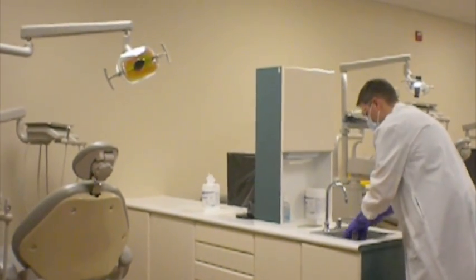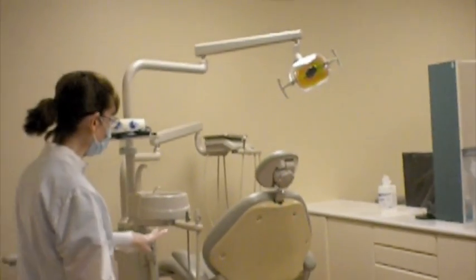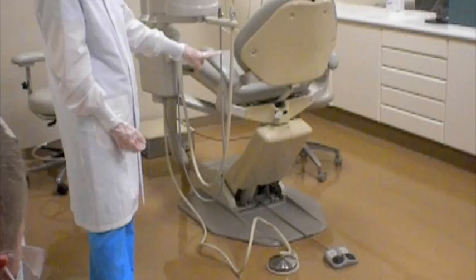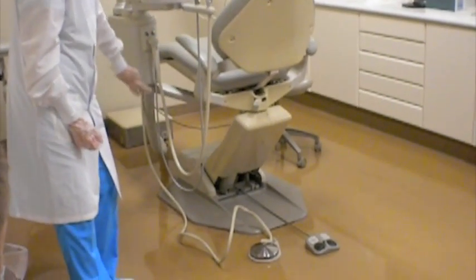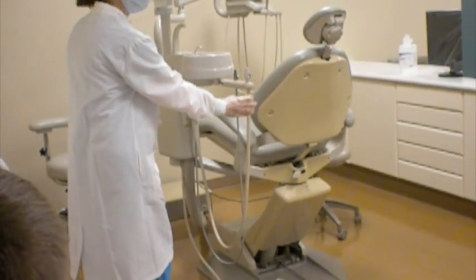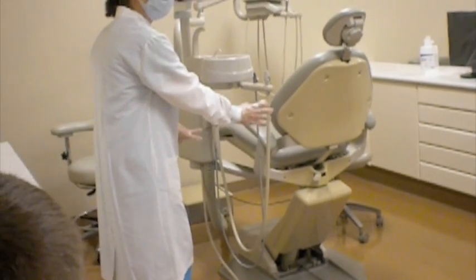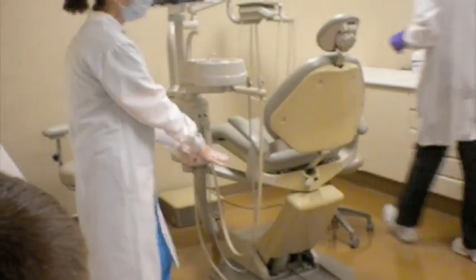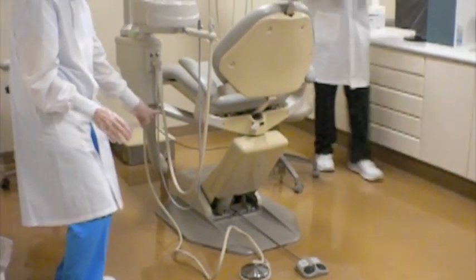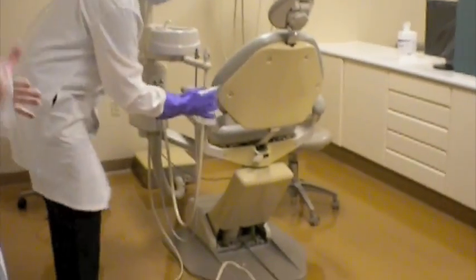So now he's going to begin with the sanitization wipe of the bases. And the sanitization wipe of the bases begins at the 6 inches down on the cords, and these are the only cords that you wipe this way towards the unit. The reason is that the patient oftentimes will be holding these, even though they'll have a plastic barrier on there. Sometimes their hands are on these cords, and these cords, when the chair is down, are dragging on the floor, and so we don't want to wipe what's on the floor up toward their hand. So we move where their hand would be towards the unit.